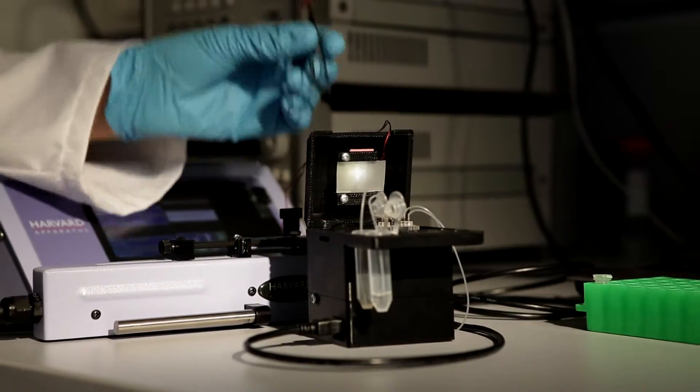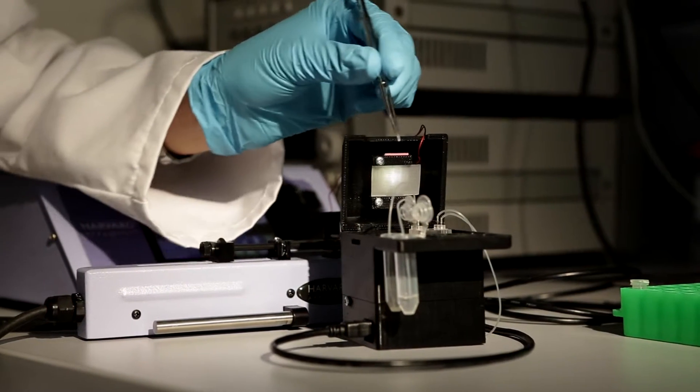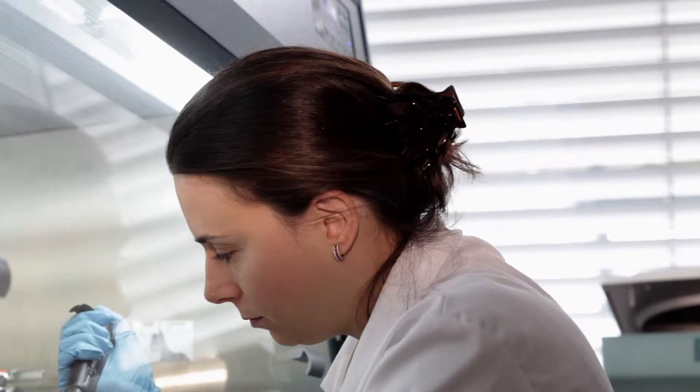At EPFL, Professor Guiducci is working on just this sort of treatment. A device which brings together the fields of electronics and life sciences.